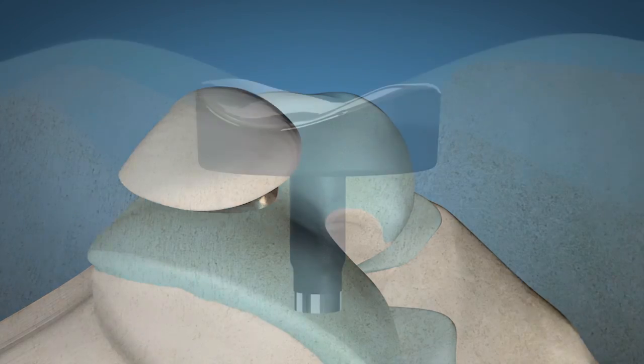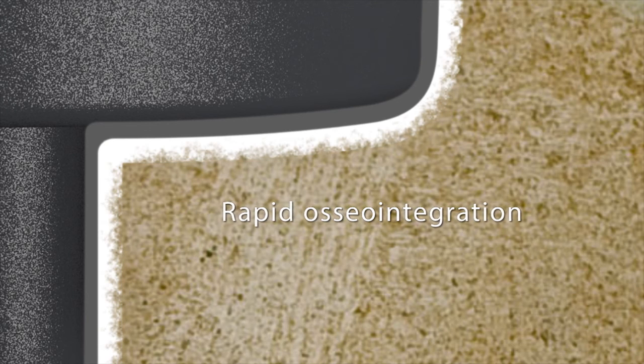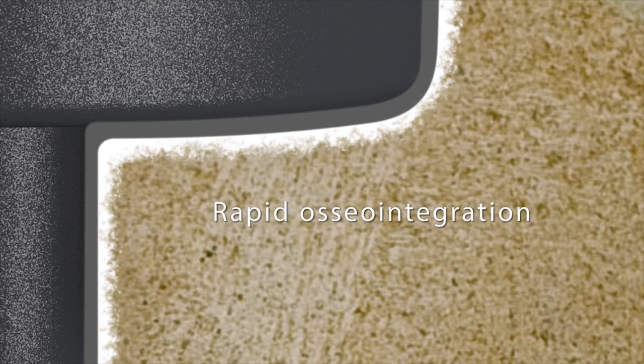The bone anchoring part of the implant is double coated with bioactive hydroxyapatite onto a layer of titanium, which stimulates rapid osseointegration and safeguards a long-lived bone anchorage.